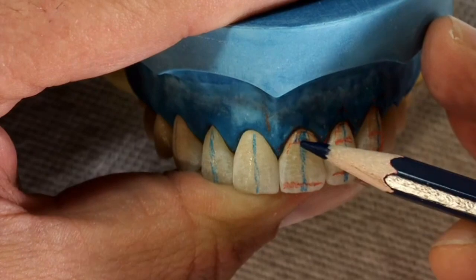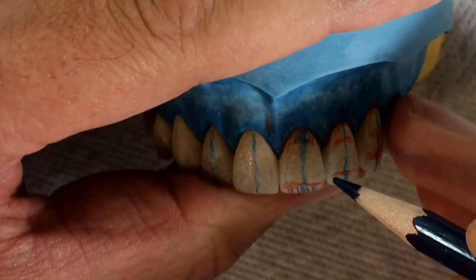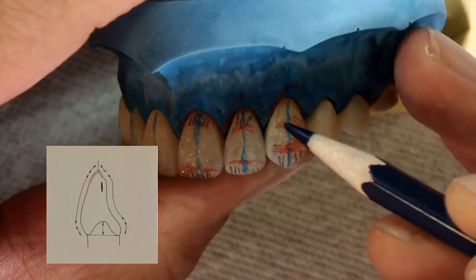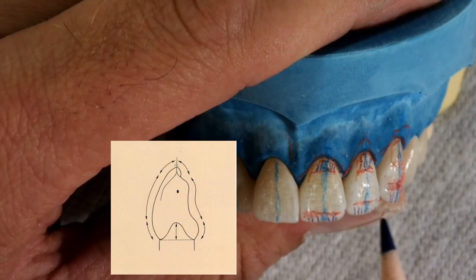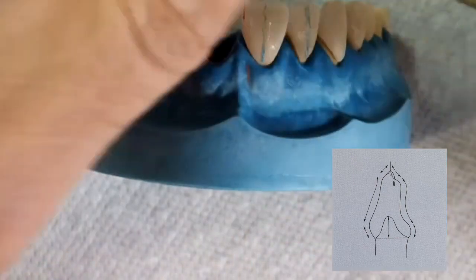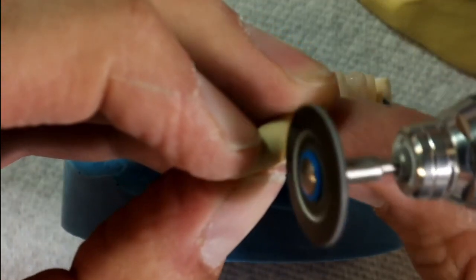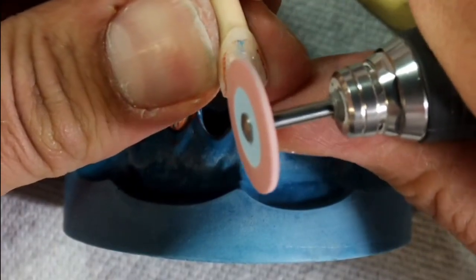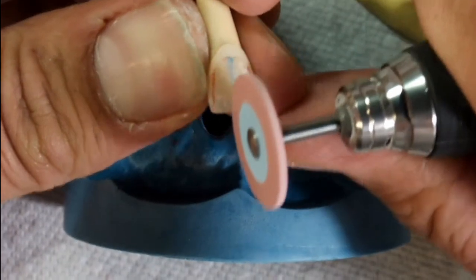What do these three planes mean for contouring? Each plane is a guide when we take a rubber wheel or a diamond burr to shape the crown. I will demonstrate using a medium soft rubber wheel to roll in the cervical and incisal plane based on the tooth shape I'm trying to achieve. This step must be done prior to all other steps — for example, defining the line angles or surface texture. I'm using a medium strong rubber wheel and thinning down the margins a little, then switching to a softer rubber wheel and rolling in the incisal edge carefully at the marked line.